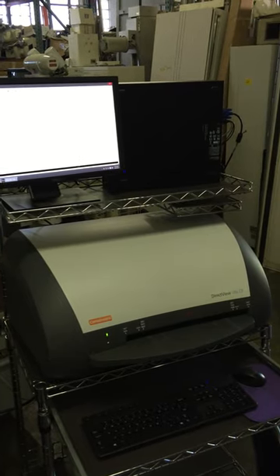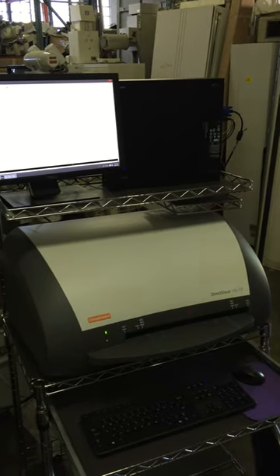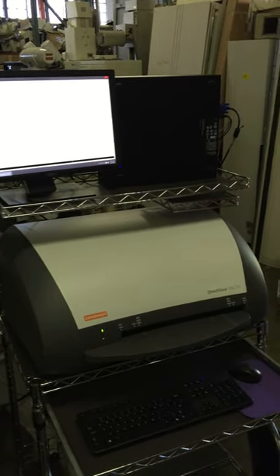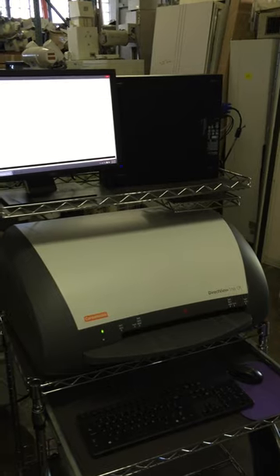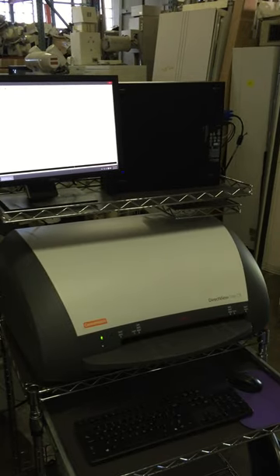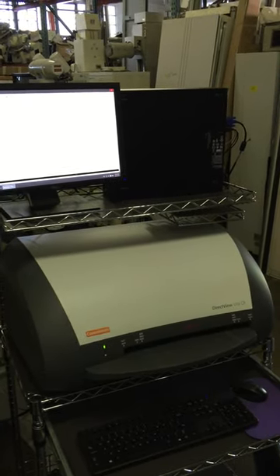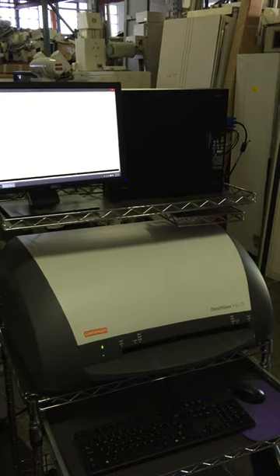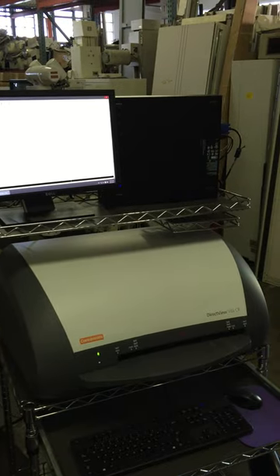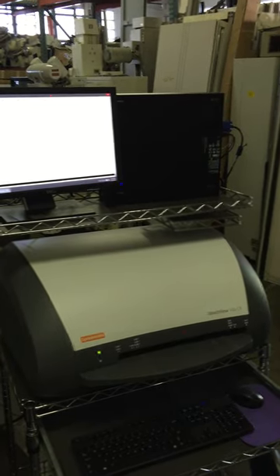then the Vita CR unit. We've taken an x-ray and put it on one of the plates, so we're going to take you through how to process this.